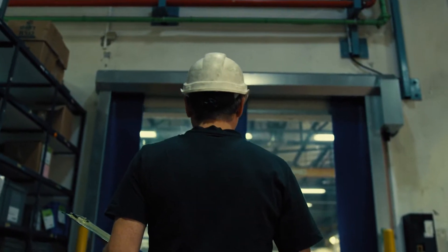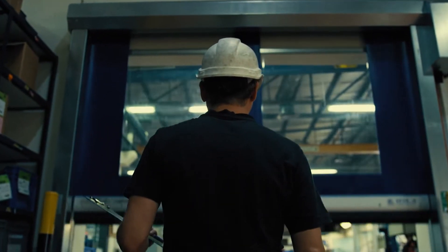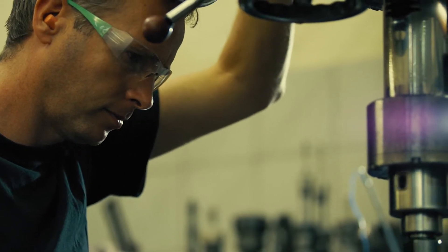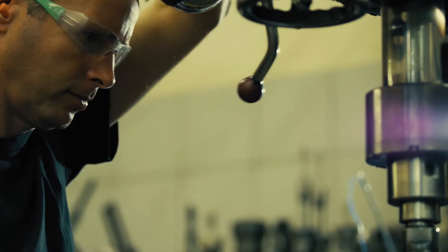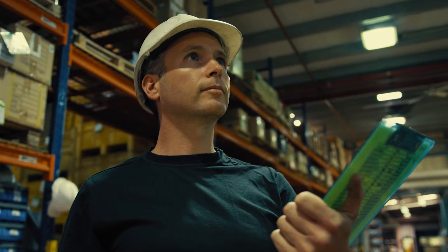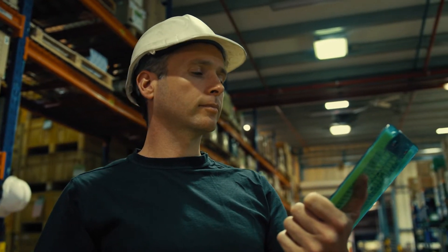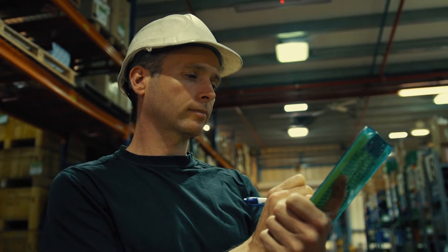At Red Fluid, we had the ethical obligation to manufacture new Peep Valves to be introduced into the market in an extremely short period of time. This quite remarkable engineering achievement really represents a complete revolution in the way valves are made.